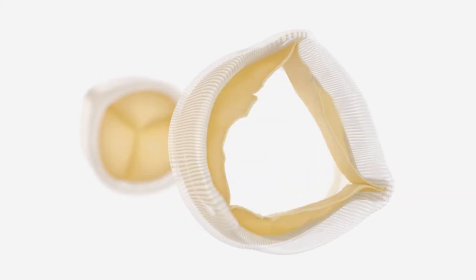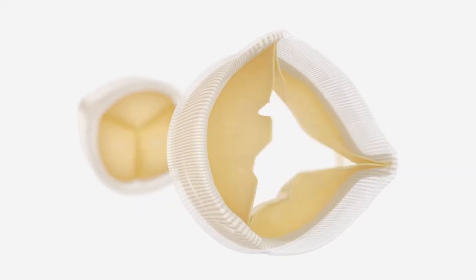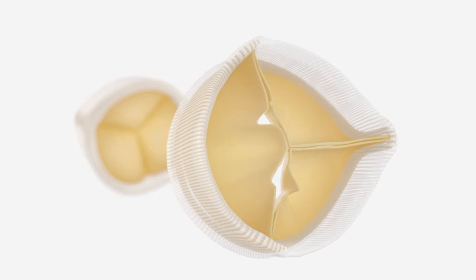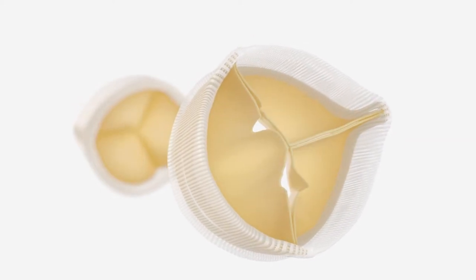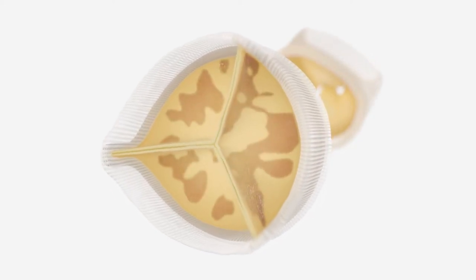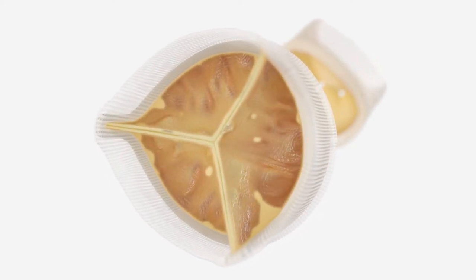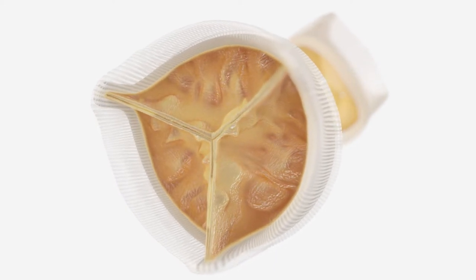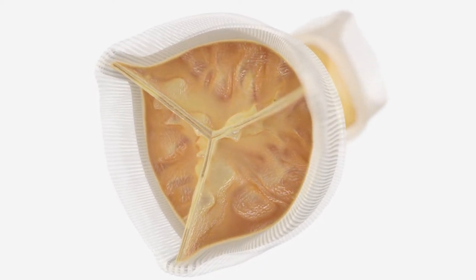There are two main modes of failure in tissue heart valves: biomechanical, which is a failure related to the repetitive mechanical movement of the valve opening and closing, and biochemical, where the valve becomes calcified. Mechanical failure typically presents with leaflet tear, and biochemical with calcific stenosis.